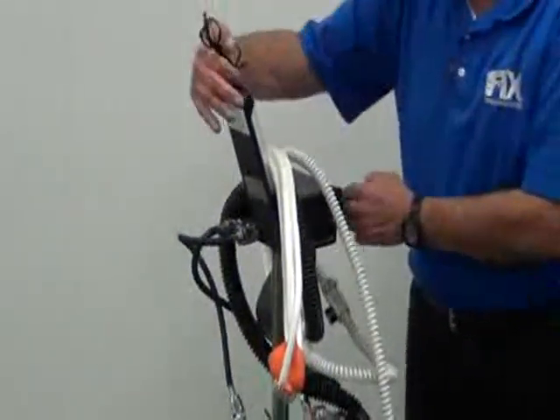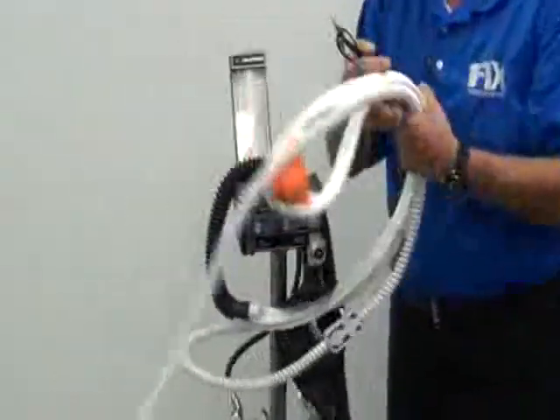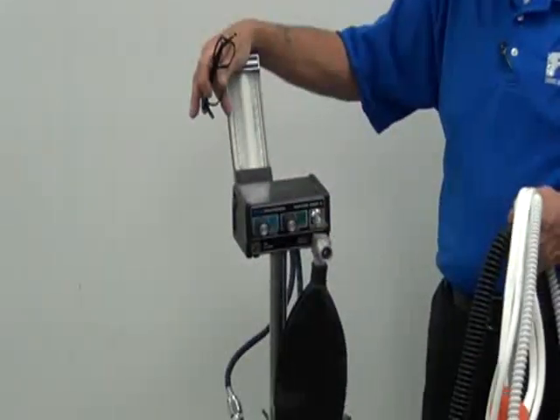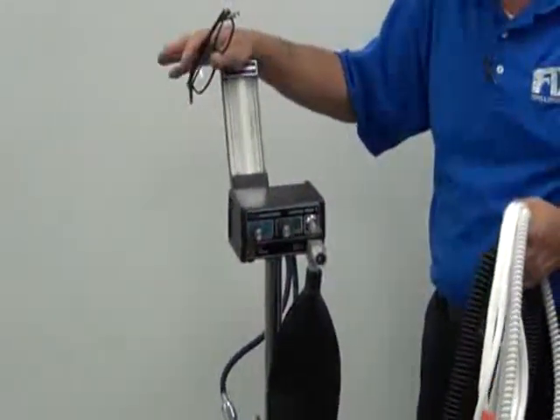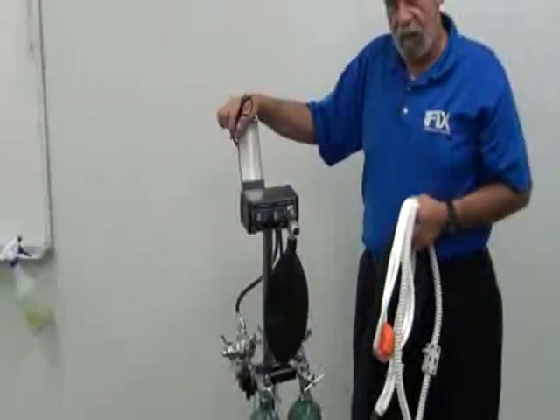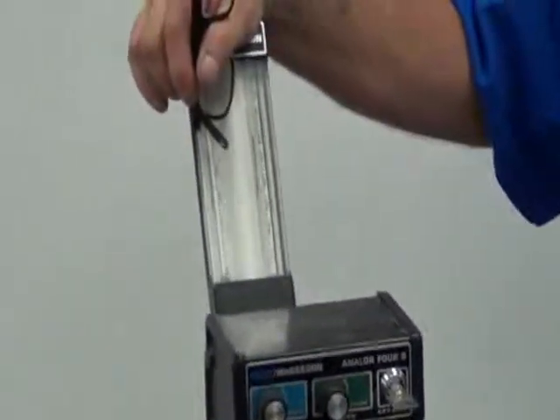Now let's talk about some of the components on the flow meter. This is your actual dose meter itself, or the flow meter. It consists of glass tubes that are not at all unlike a test tube. They're held at various calibrations, usually 1 liter calibrations. The nitrous is dosed in conjunction with the oxygen, again from an earlier statement.